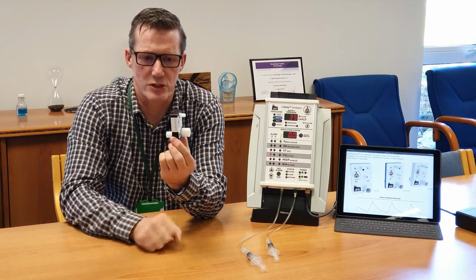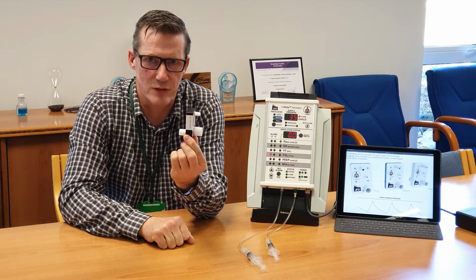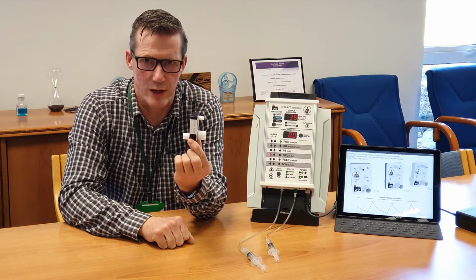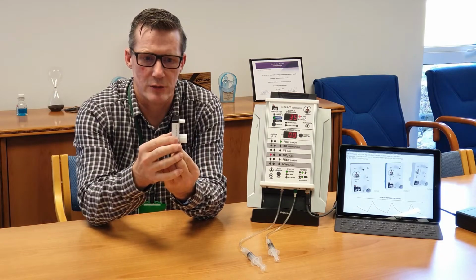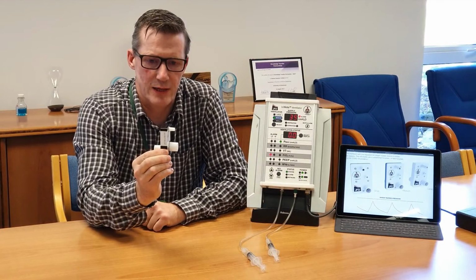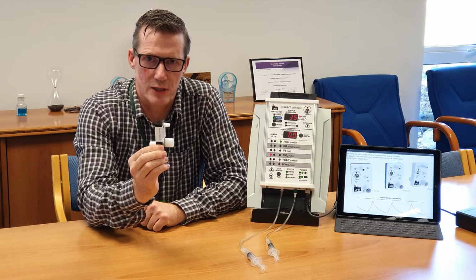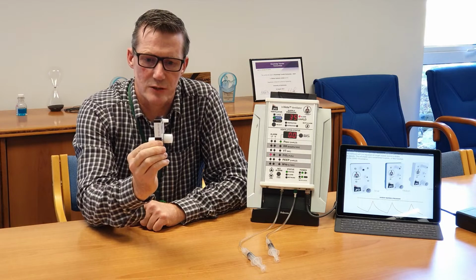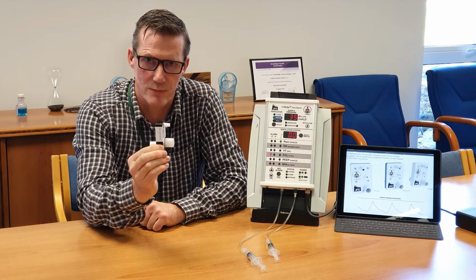What this system does is it operates like an SIMV ventilator, where it provides breathing support with PEEP if required from a gas supply that is adjusted on a gas panel, not shown here today, and that gas panel delivers oxygen and air to the patient. And the purpose of this is to provide COVID-19 support for patients who are struggling with hypoxemia.